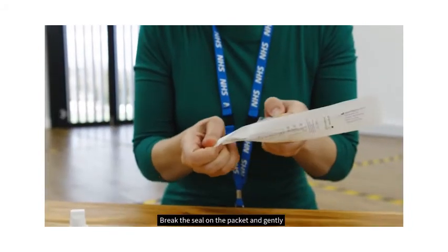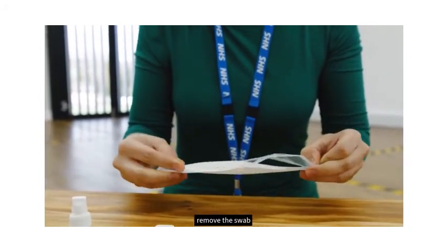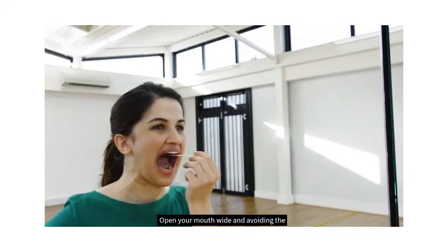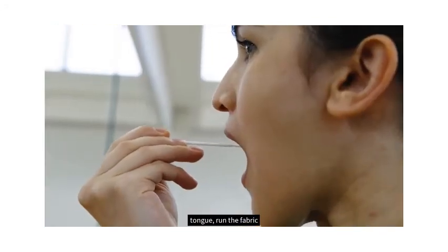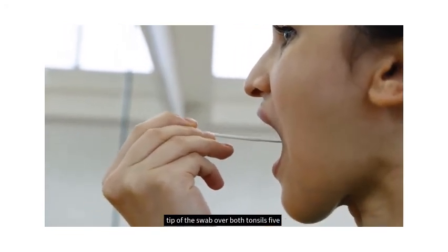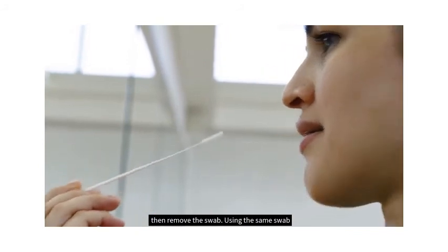Break the seal on the packet and gently remove the swab. Open your mouth wide and, avoiding the tongue, run the fabric tip of the swab over both tonsils five times each, then remove the swab.